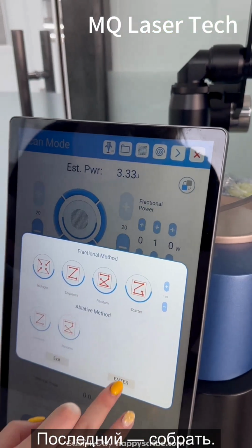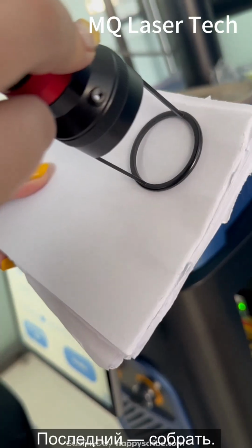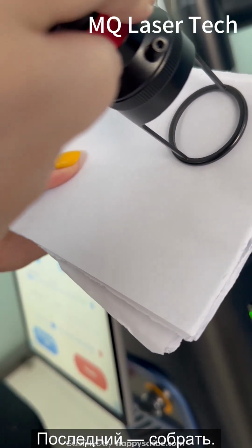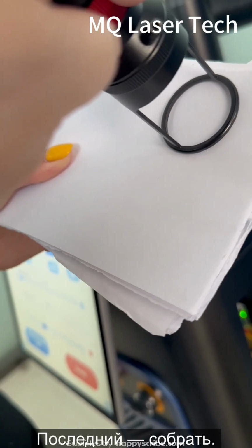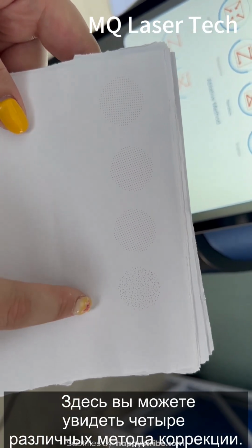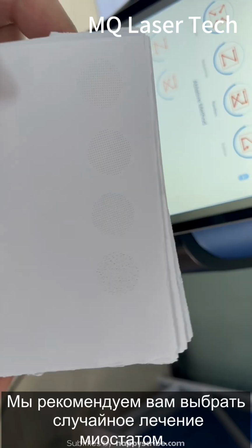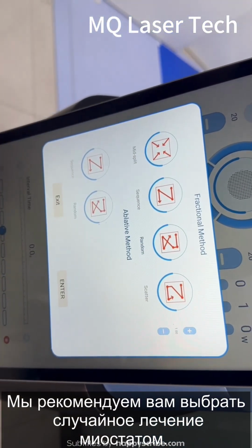The last one is scatter. These are four different fractional methods. The order is different. We recommend you choose random when you start the treatment.